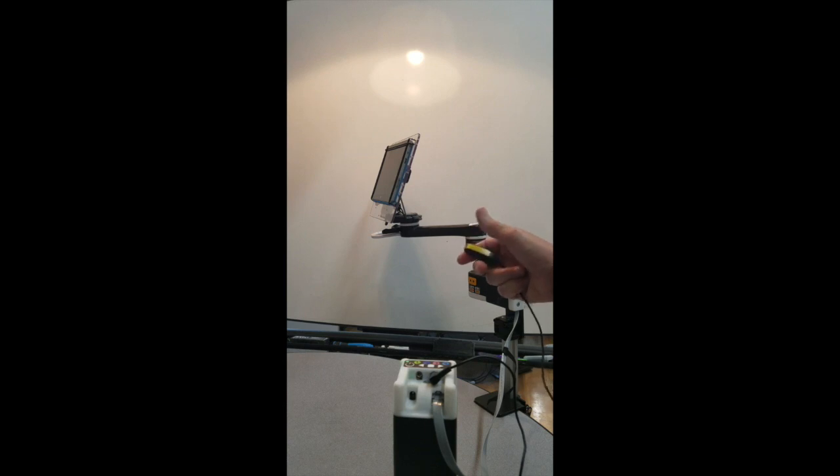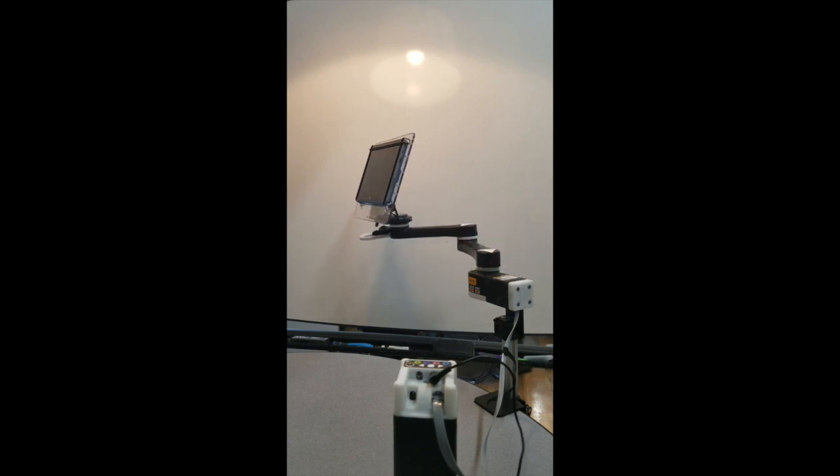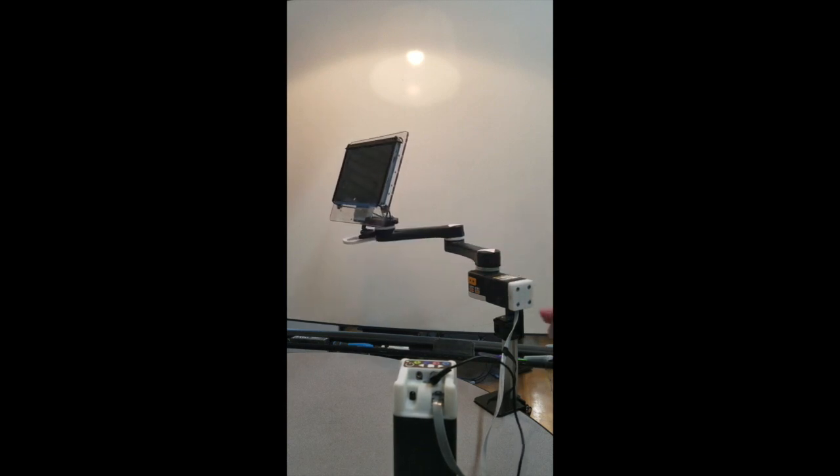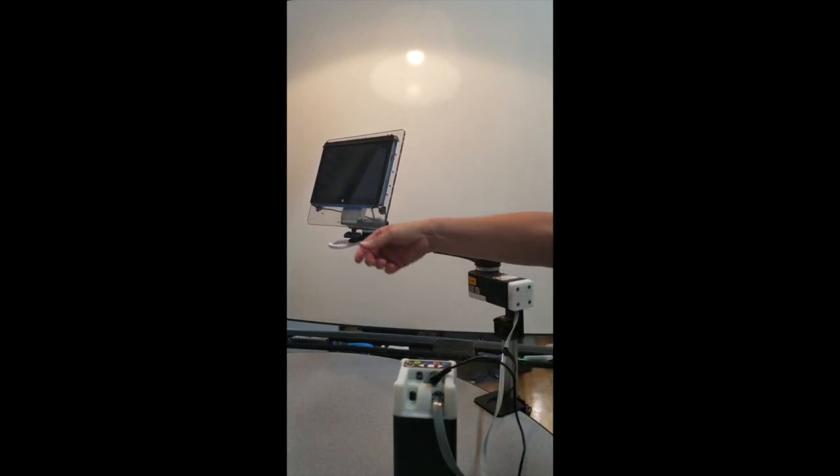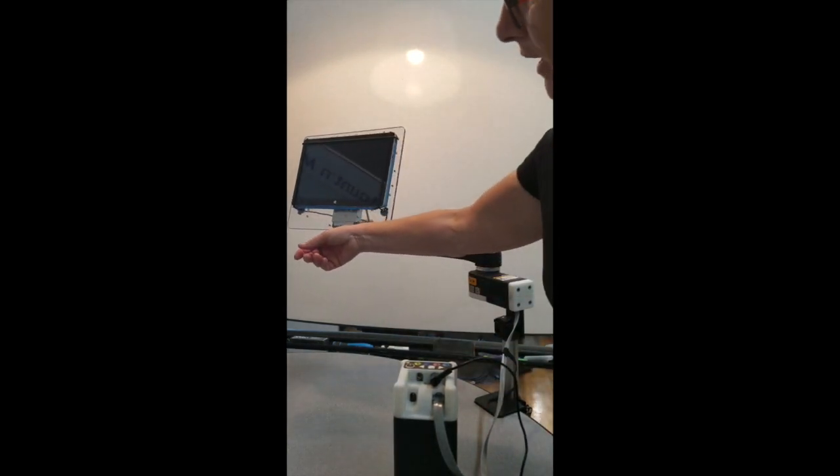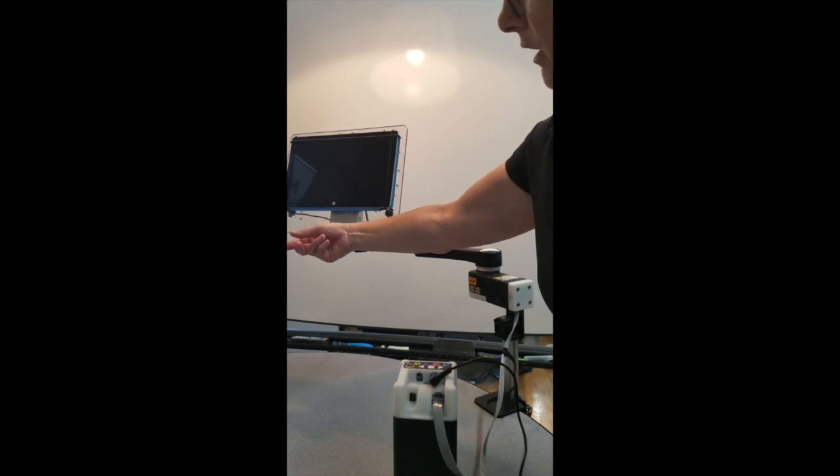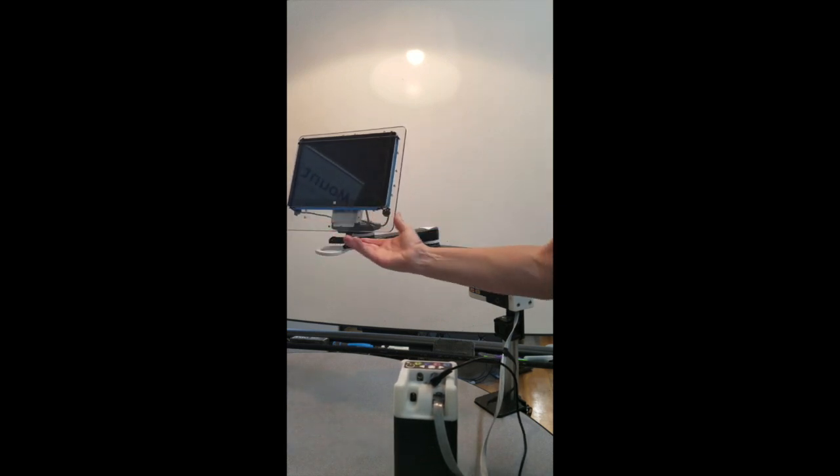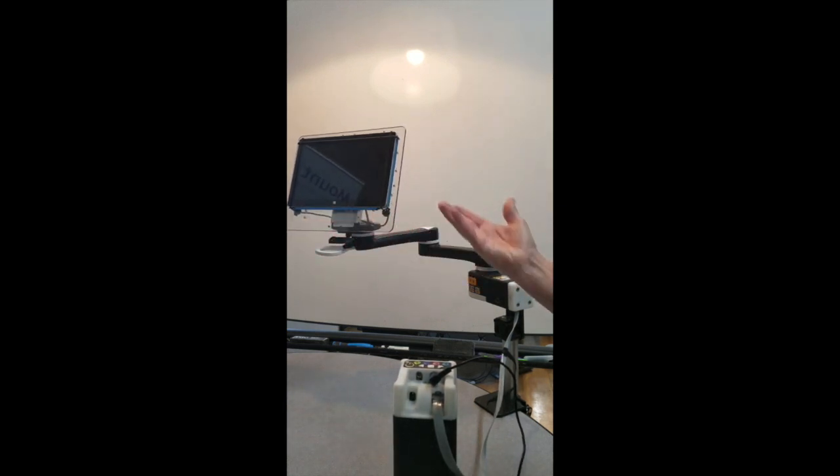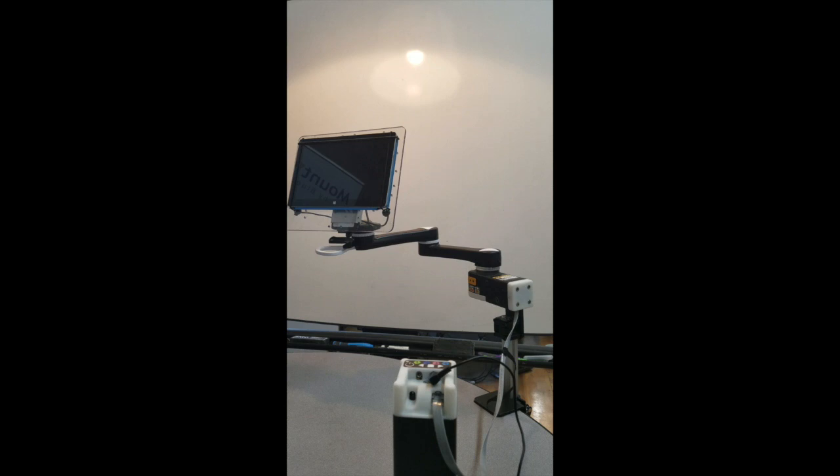What if I hit the switch and it's coming at me, and I get in the way? Well, there you can see we built in a back off feature. It'll back off even if it runs into you.